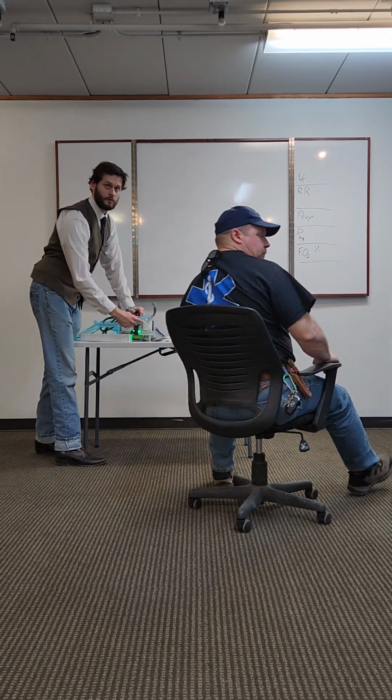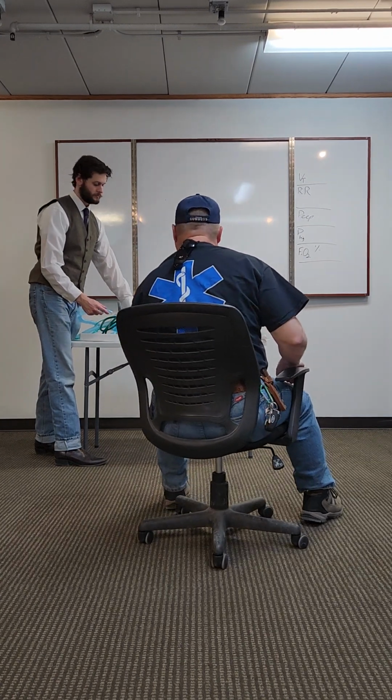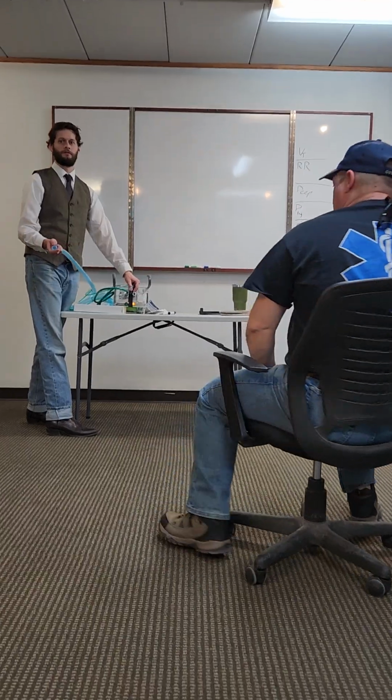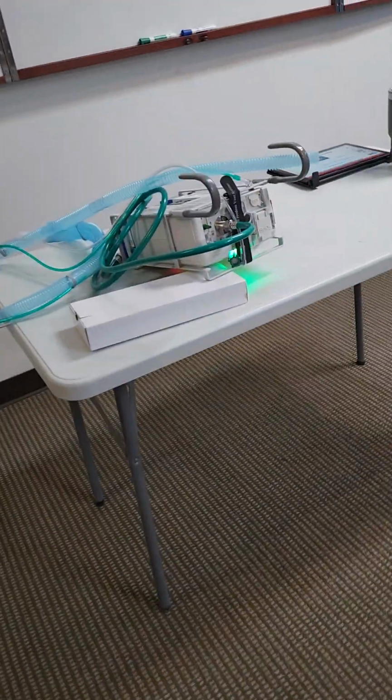Hey TJ, do you want me to come closer? Yeah, that'd be great. You can move the camera. Oh, yeah, I'm sorry. Here, we can move. Here, I'll just hold it, because I wanted to see the vent.